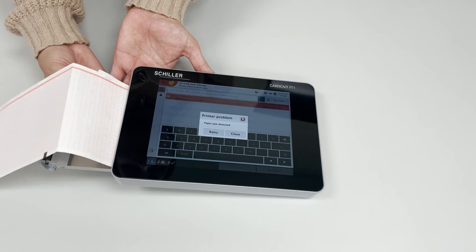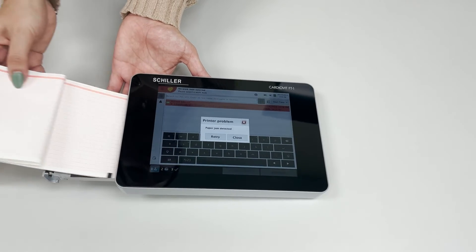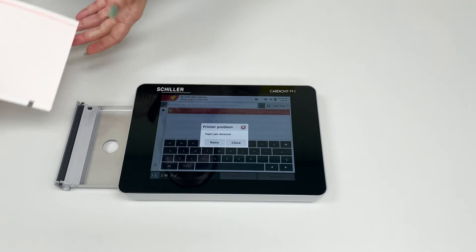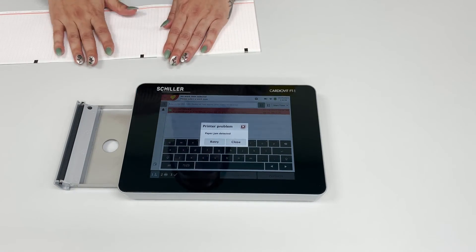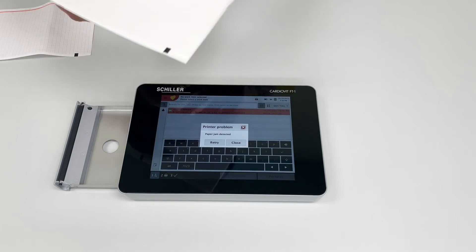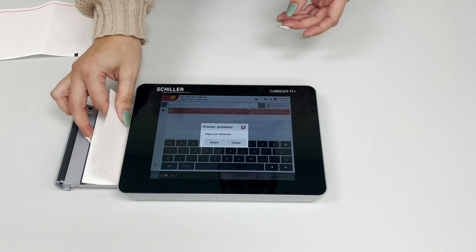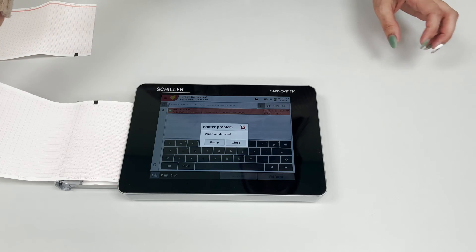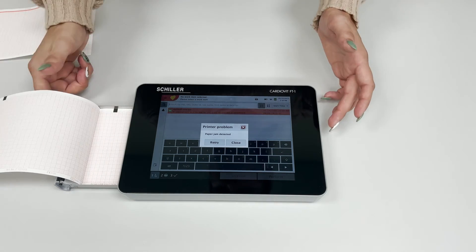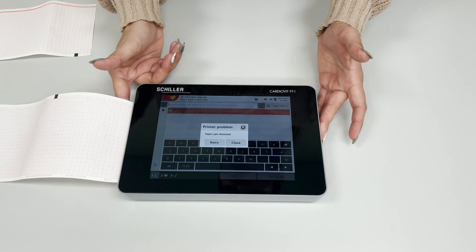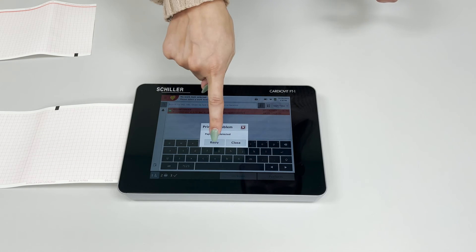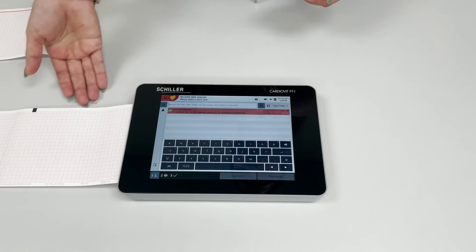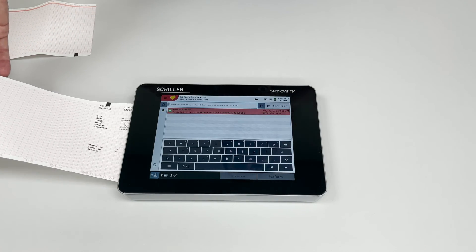You can extend that one page out, or two in this case. Once you press retry, now you have print once again.